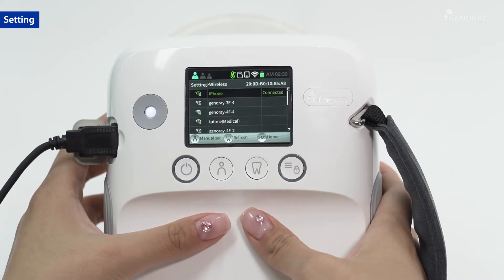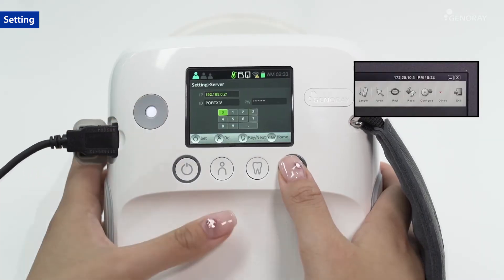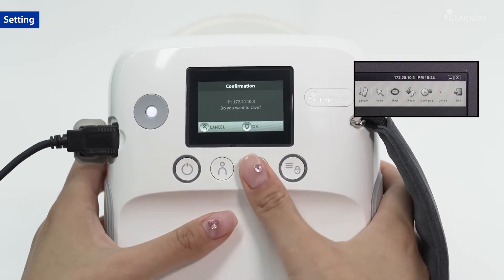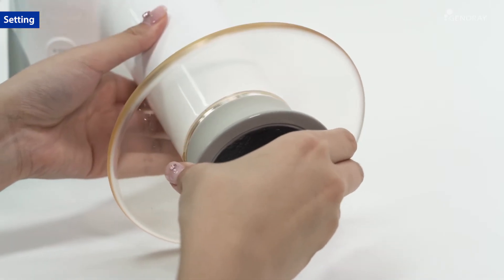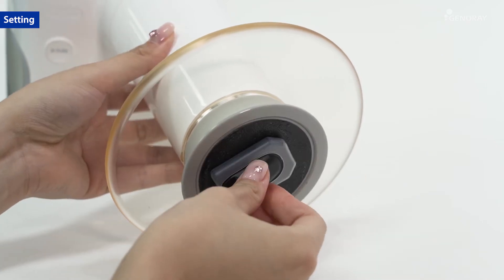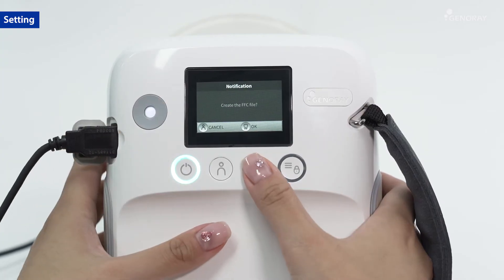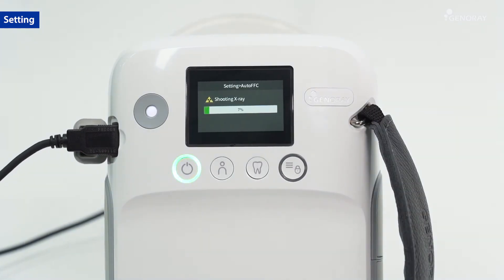Set the preferred server to connect. You can check the IP address at the top right of PortView software. Sync the sensor with the Portable to use for operation, and generate an FFC file for sensor registration.